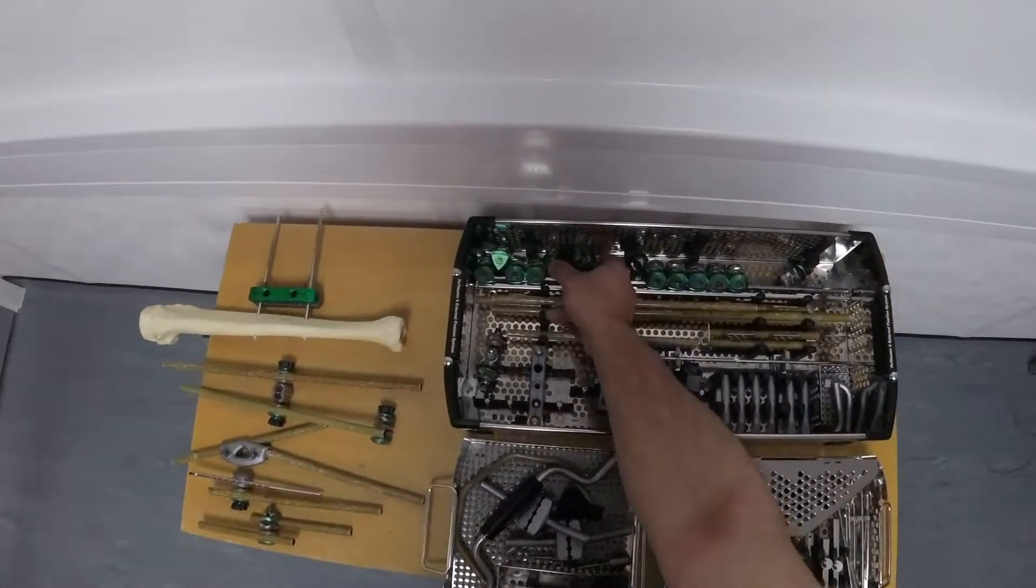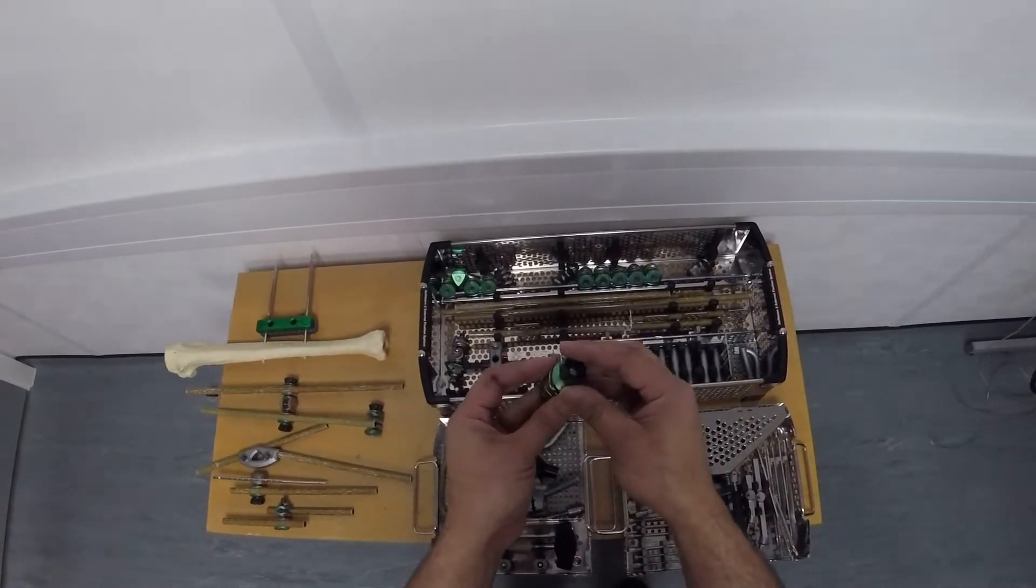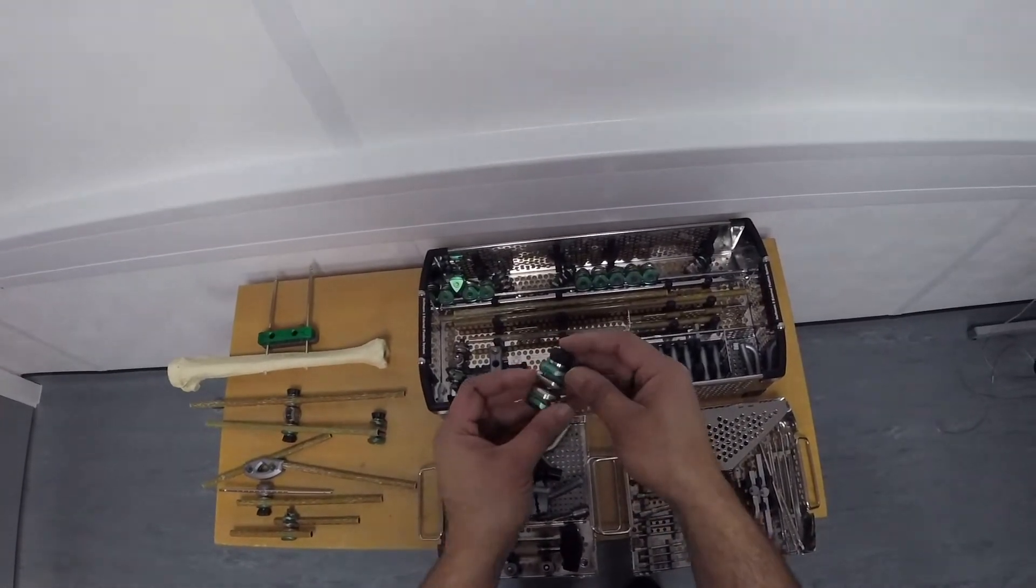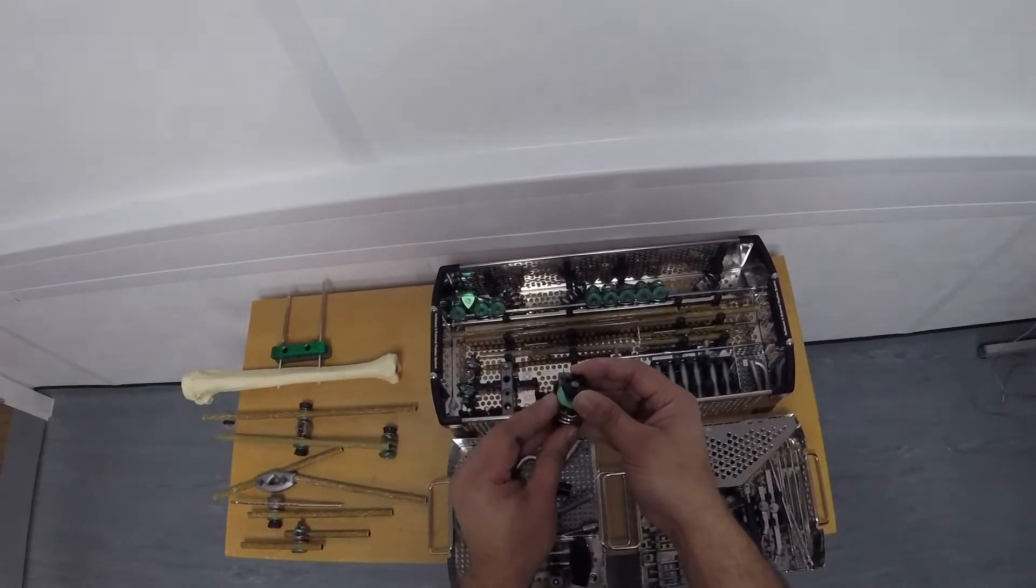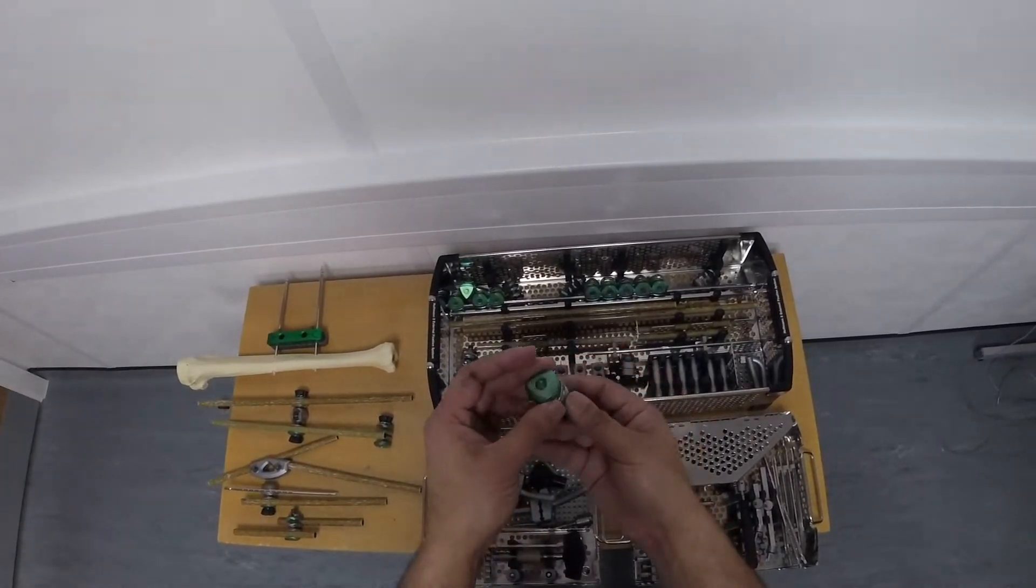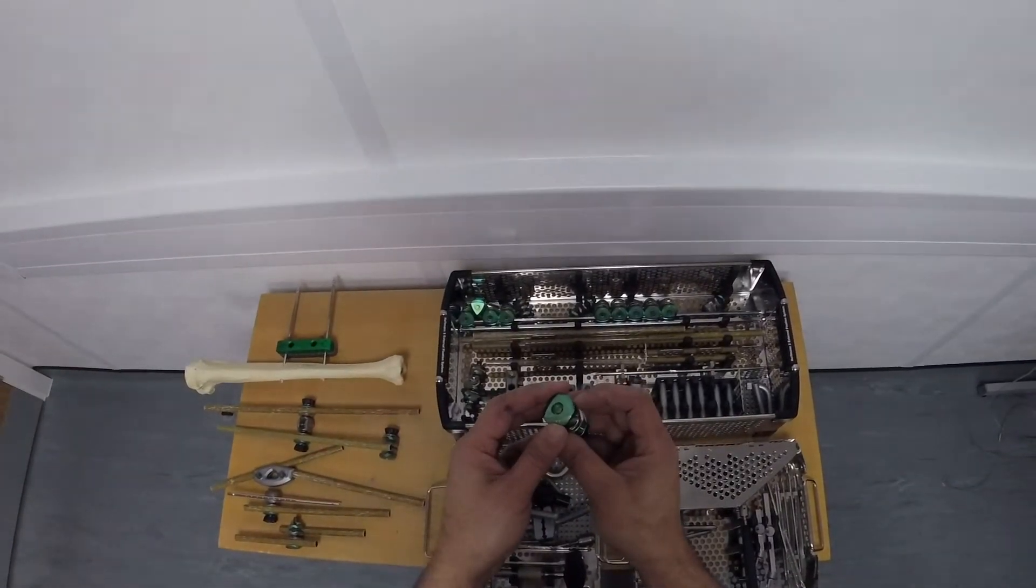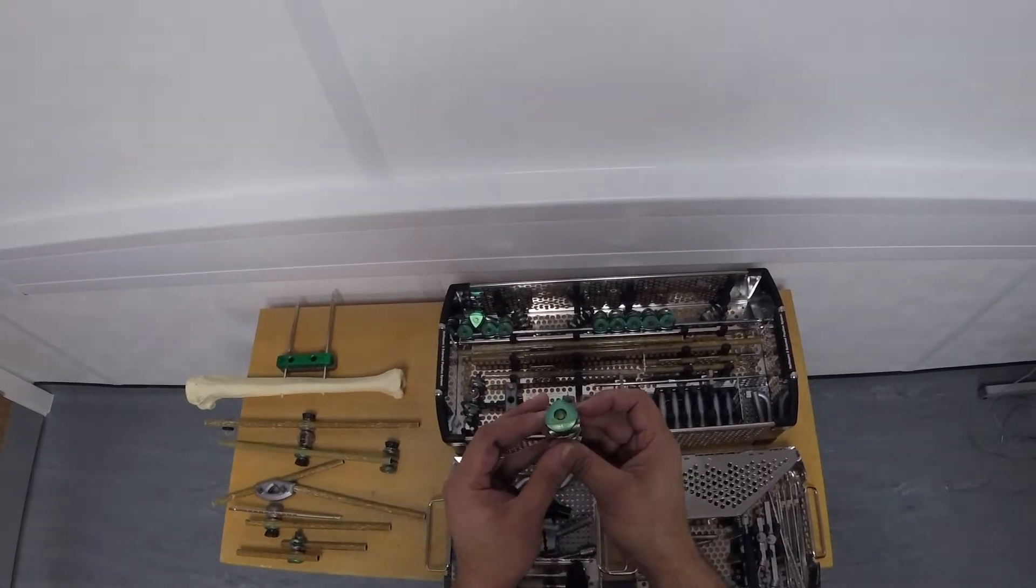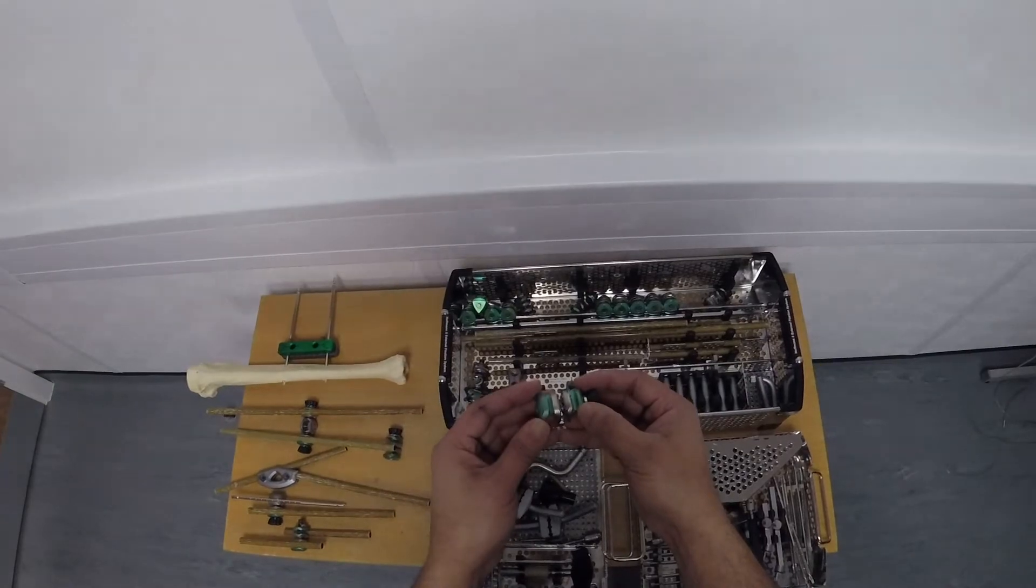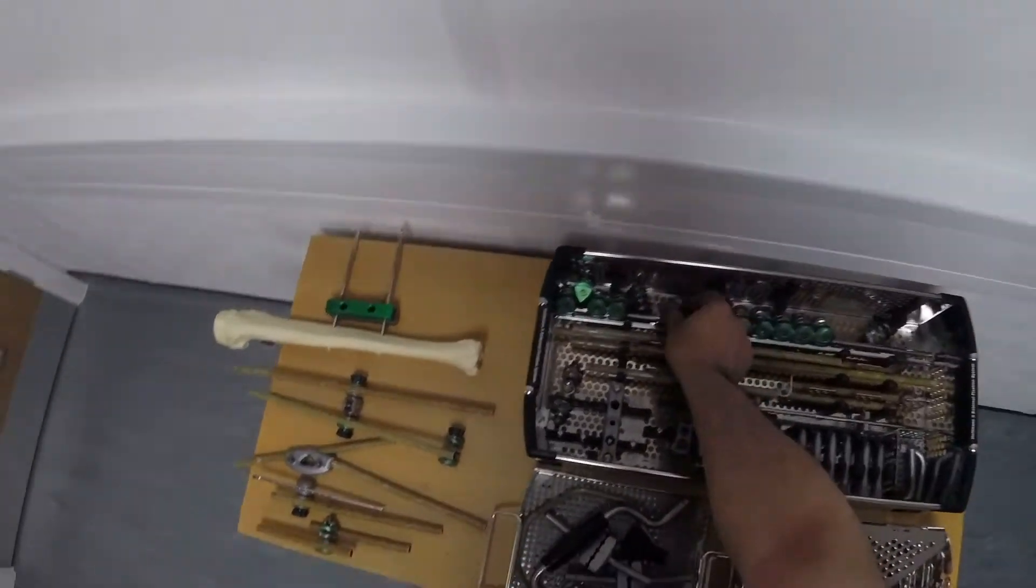The key to the Hoffman is this little thing, this is the delta clamp. You can see that it's annotated with numbers 5, 8 and 11. That corresponds to 11mm, 8mm and 5mm apertures, which can grip a half pin or an external rod. On the other side it also says 5, 8 and 11. That means you can have either a 5mm pin or an 11mm bar or an 8mm external bar connecting to this clamp. This is green on one side and green on the other side, so they both have 5, 8 and 11.